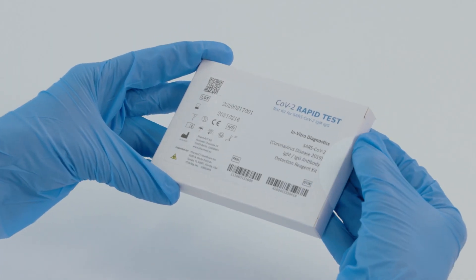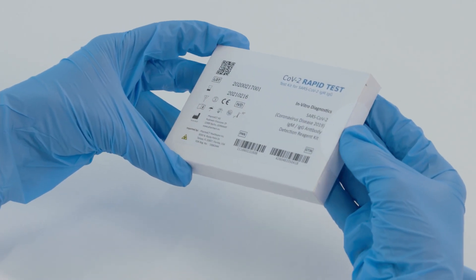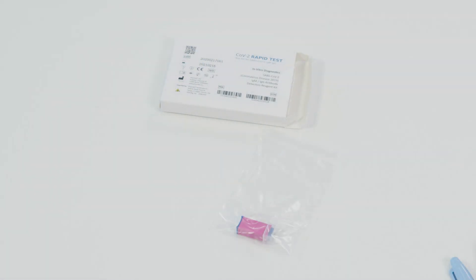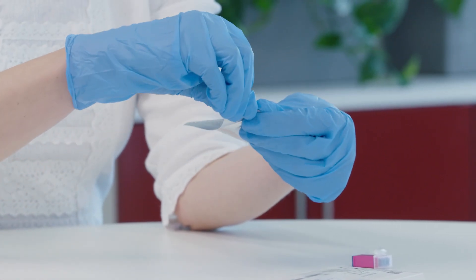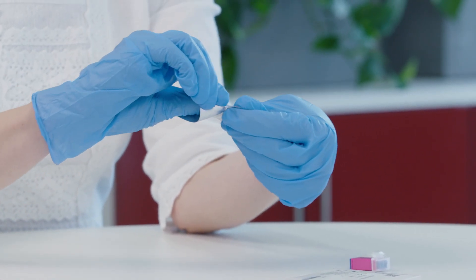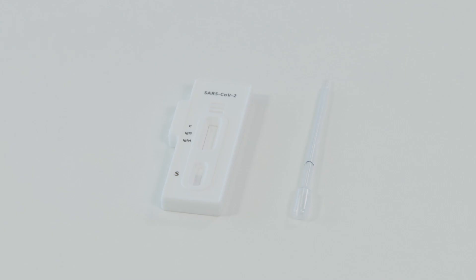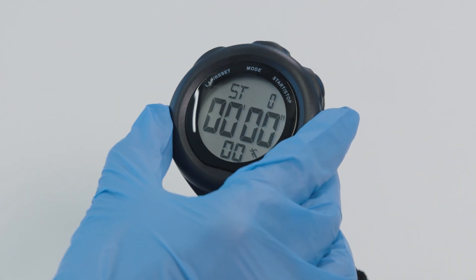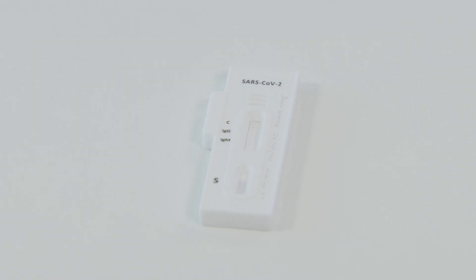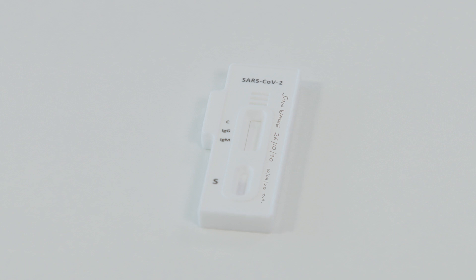Unbox the product, open the packet and remove the contents only when you are ready to start the test. The product must be used within 30 minutes of opening. Prepare a stopwatch to time the test and mark the test strip cassette with a specimen ID.